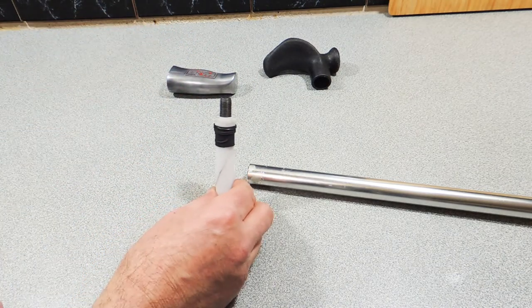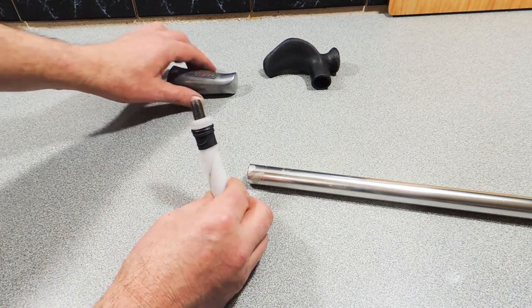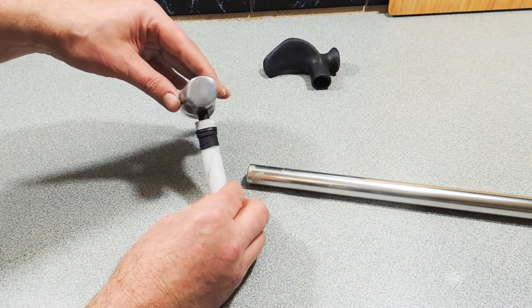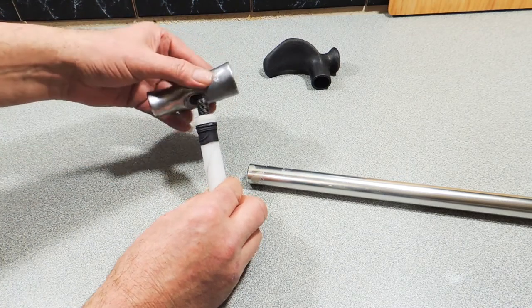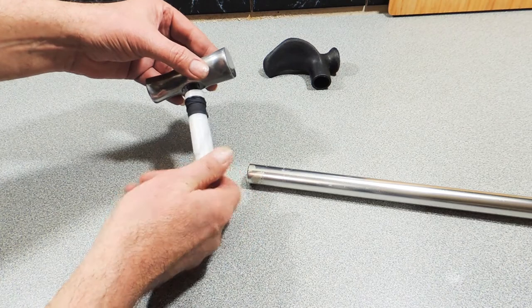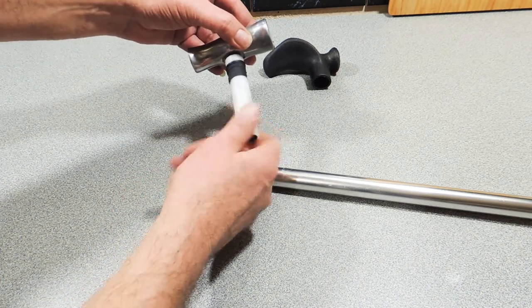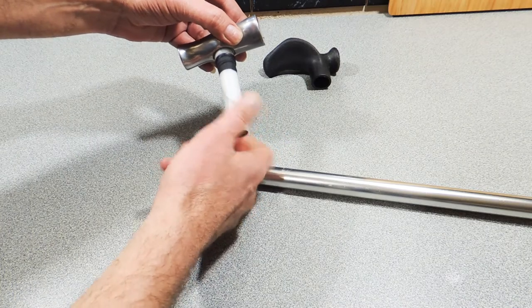A little spacer to take up the little indentation under the knob, as you can see under there very briefly, and all we simply have to do now is get our coordination together, which is another problem of mine, and we just screw that straight up like that. How simple and what an ingenious idea.